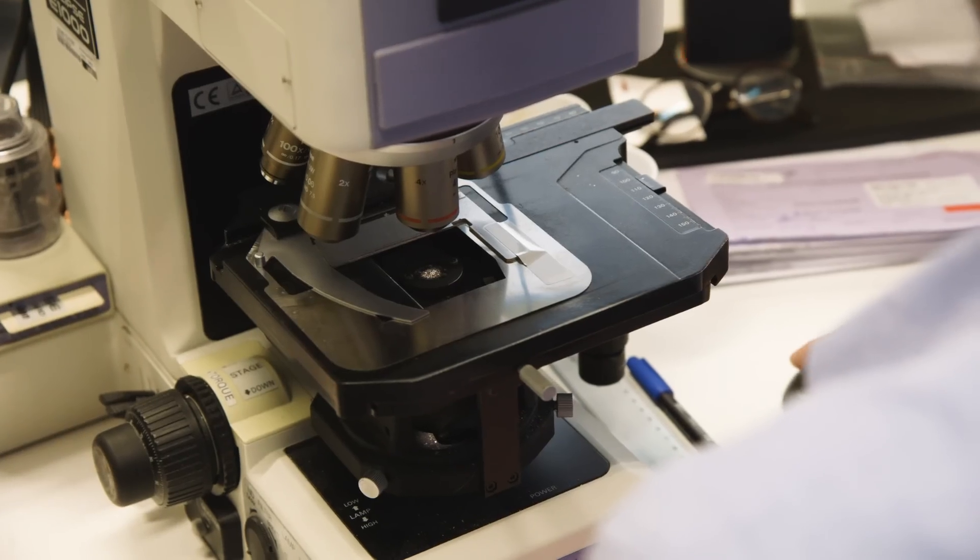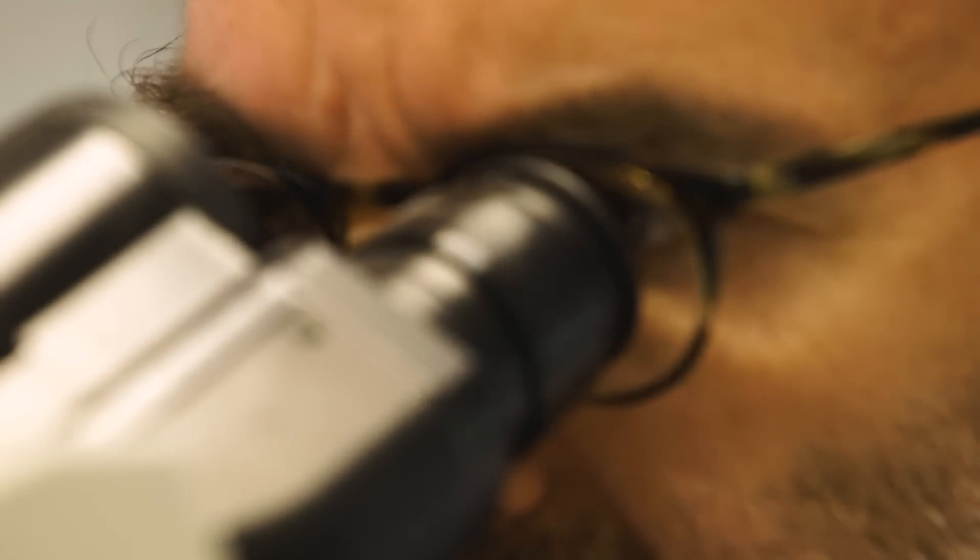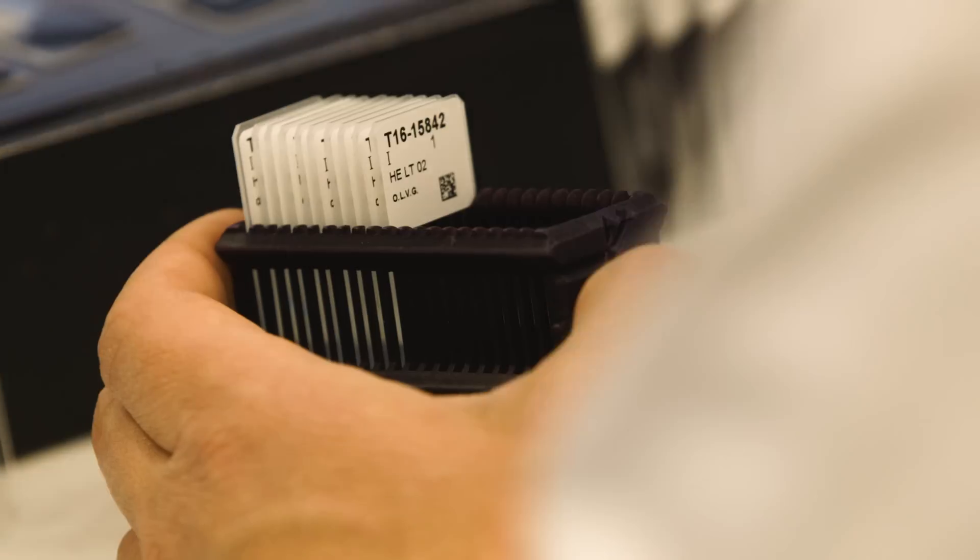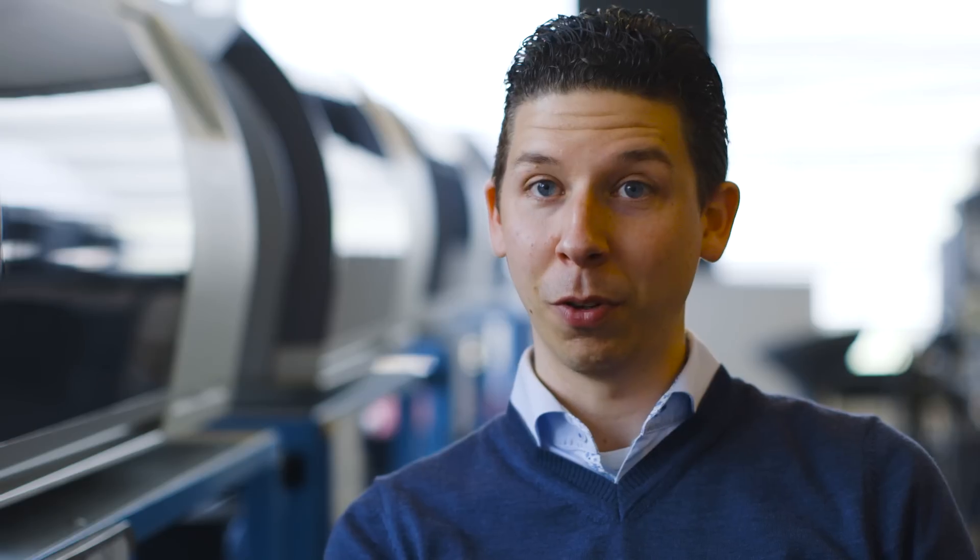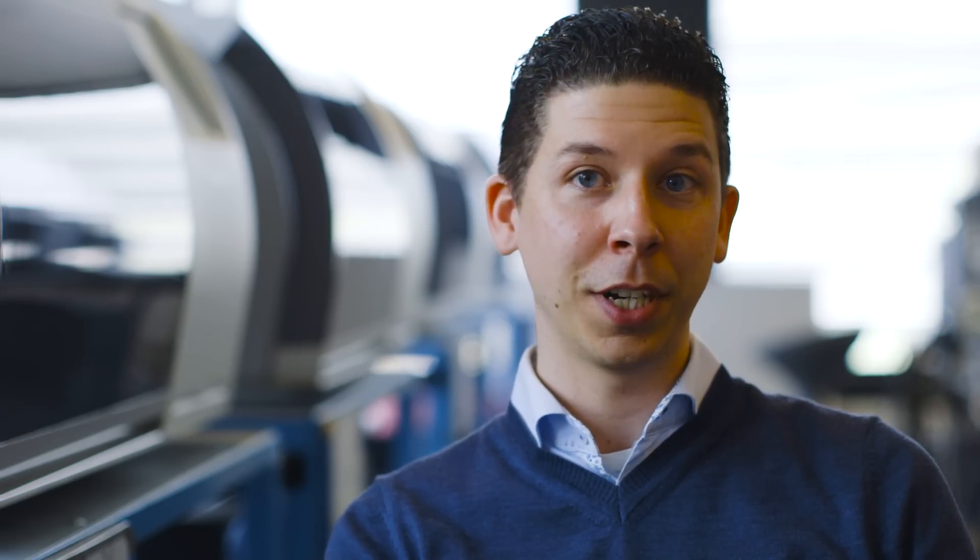In the traditional way of working of the pathologist, he really is married with his microscope. So when he would like to make a diagnosis, he needs a microscope glass. When he would like to have a second opinion, that also implies that the glass is actually FedExed to his colleague or to an external friend or external partner.